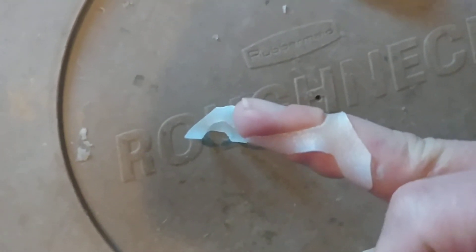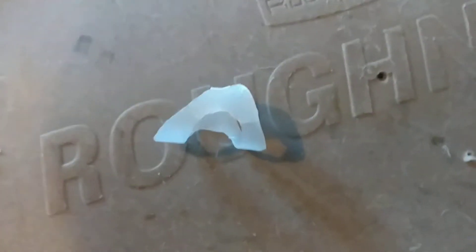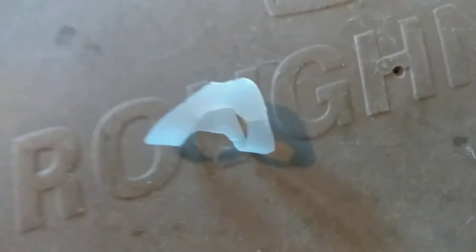How did I make one? So here's actually it on the finger. You can sort of see it keeps the finger nice and straight, not too much contact. This one's actually a little bit bigger, so this is probably a size 7 or 8 in Oval 8, and this one's a 6.